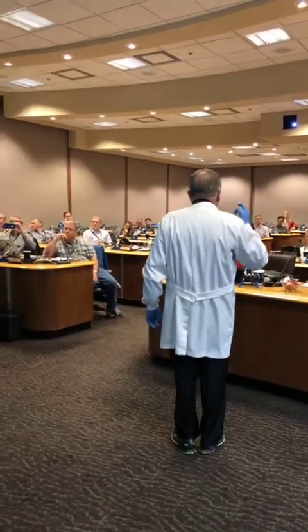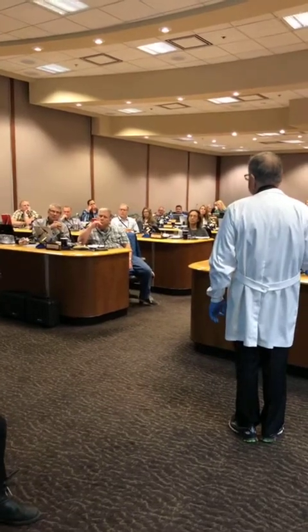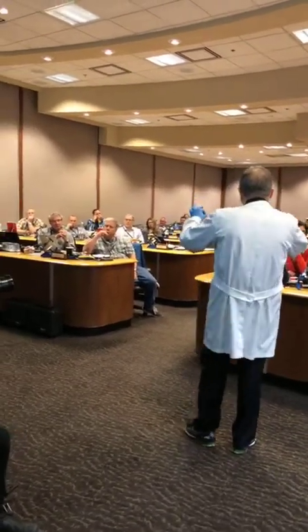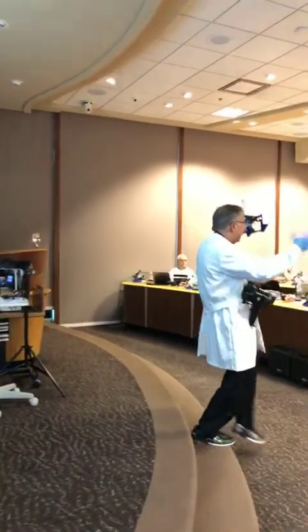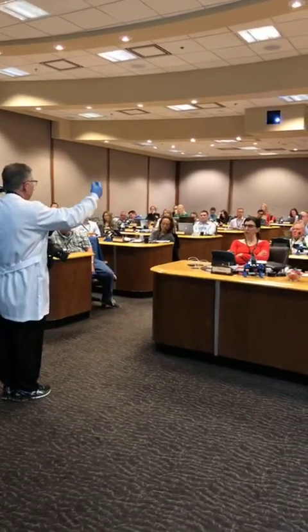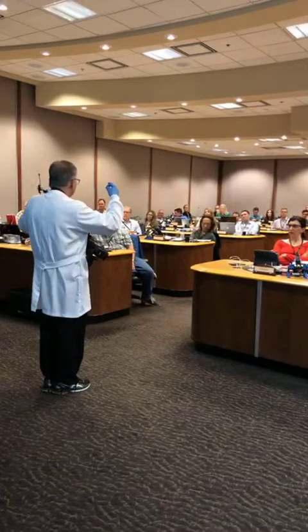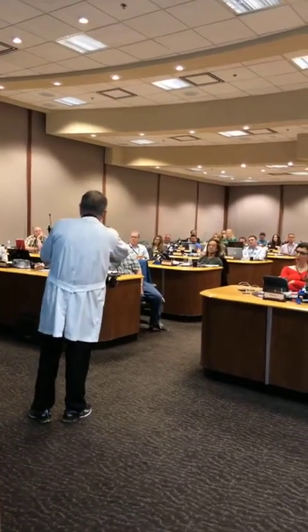No matter how much you think this is time-consuming, it's less time-consuming than some of the other things we've done. What you're learning to do is more than just digital. The problem in the digital world is coming back to the analog world. If you want a model that comes on an articulator out of the computer screen, that's what we've been working on — you can't just have everything go to a digital lab and come back as a final product.